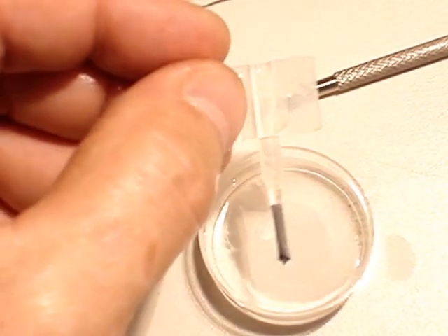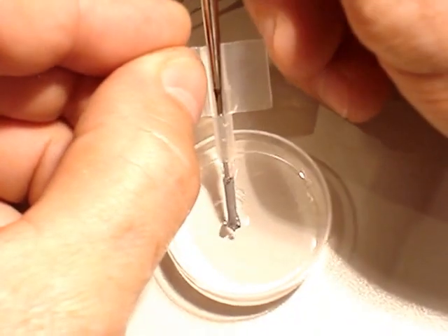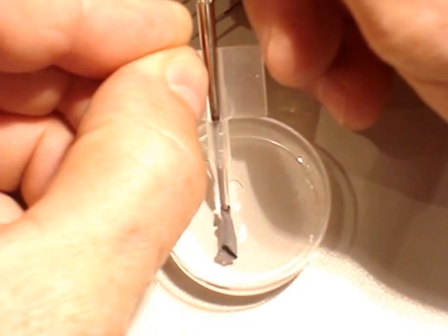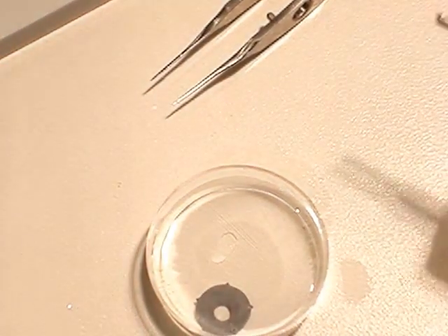But it's not necessary to do that. You just use the injector to unfold the lens inside the eye. This will unfold normally.